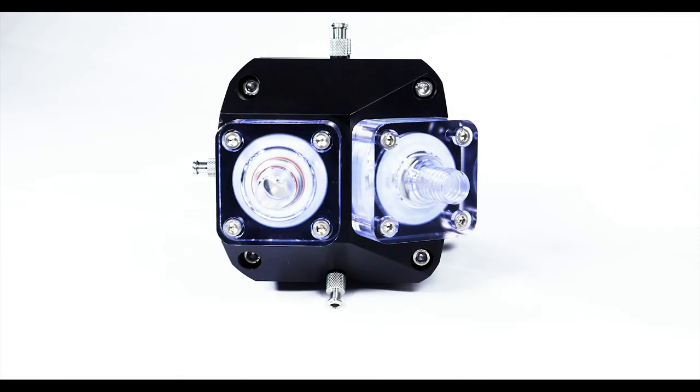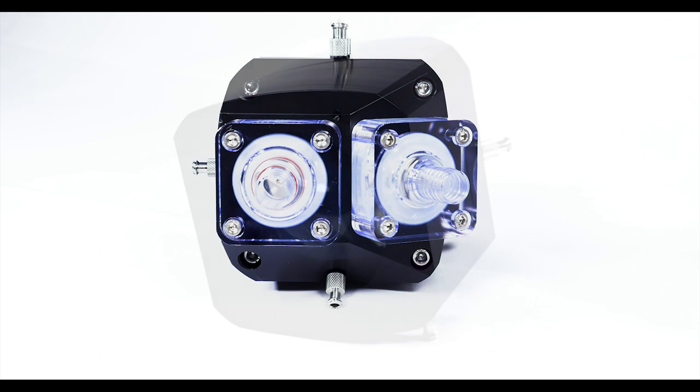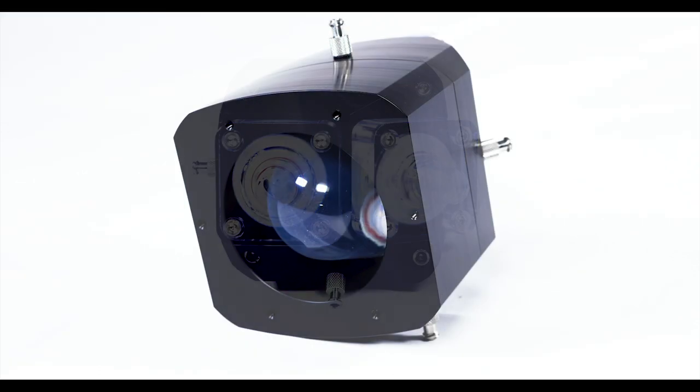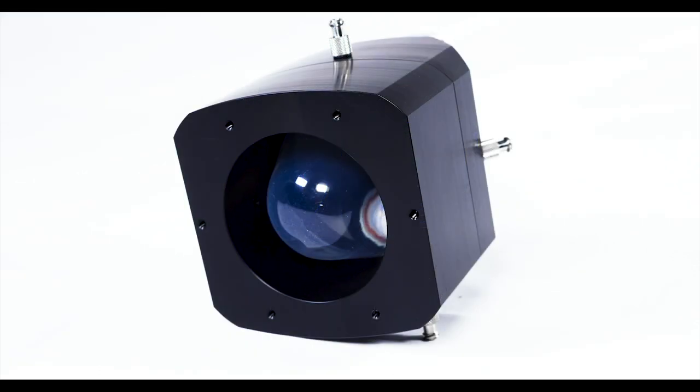The pump head is an adaptable platform for creating custom flow loops that simulate a wide variety of cardiovascular conditions. The silicone ventricle separates the test fluid from the piston seal surface which allows use with a variety of test fluids.